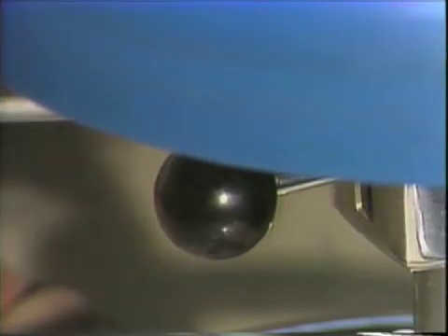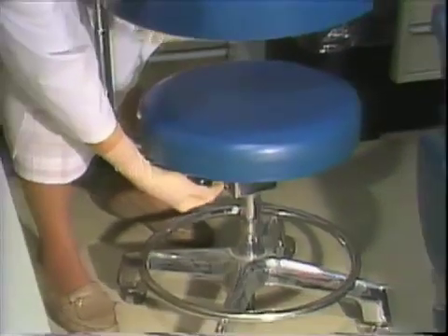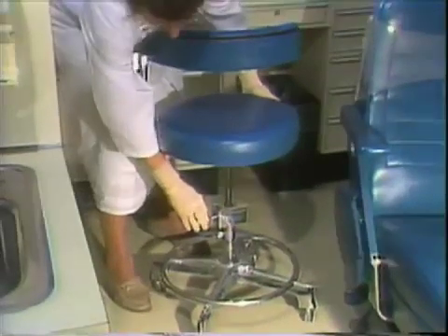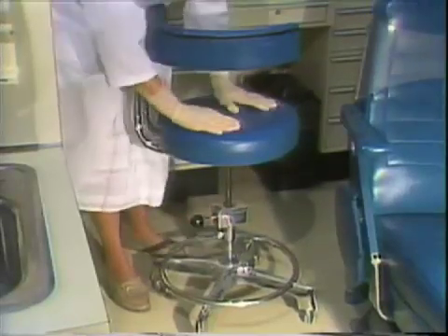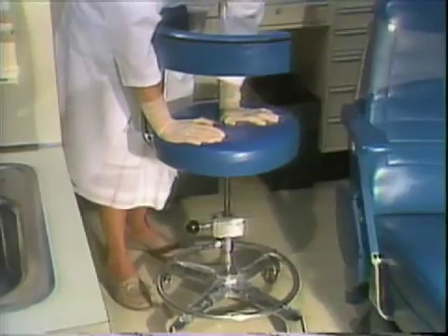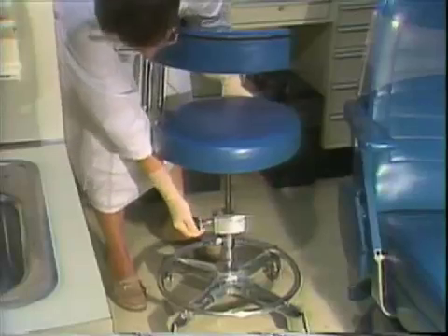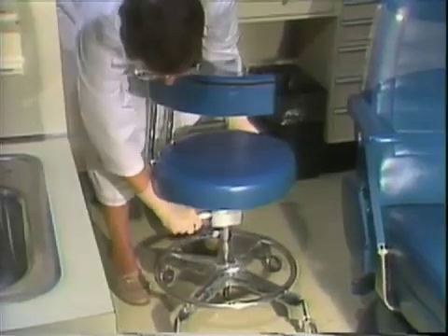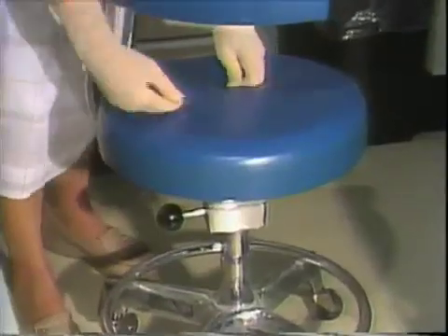To adjust the operator's stool, turn the adjustment knob to loosen. Raise the lever and pull up on the seat to raise the chair. To lower the chair, raise the lever and ease the chair to a lower position. Keep the fingers away from the shaft. Lock the chair in position by pushing down on the lever and tightening the knob to secure. Always test the chair before sitting.